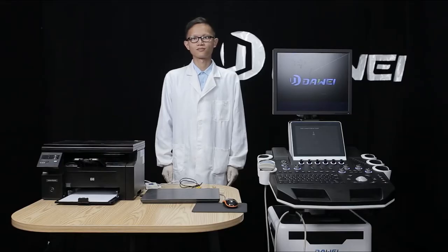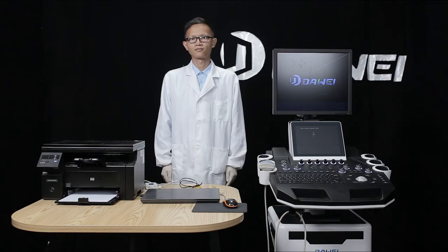Introduction of workstation installation components: the capture box, the video-to-video cable, the yellow dongle, and workstation accessories.